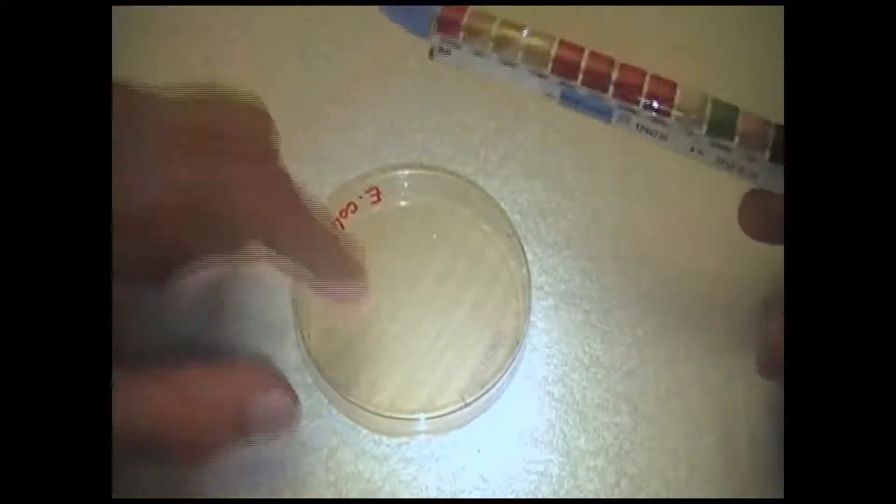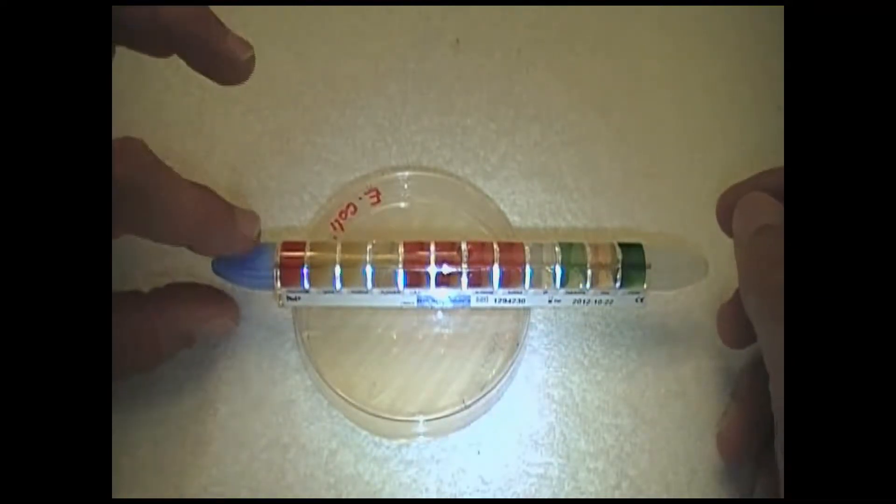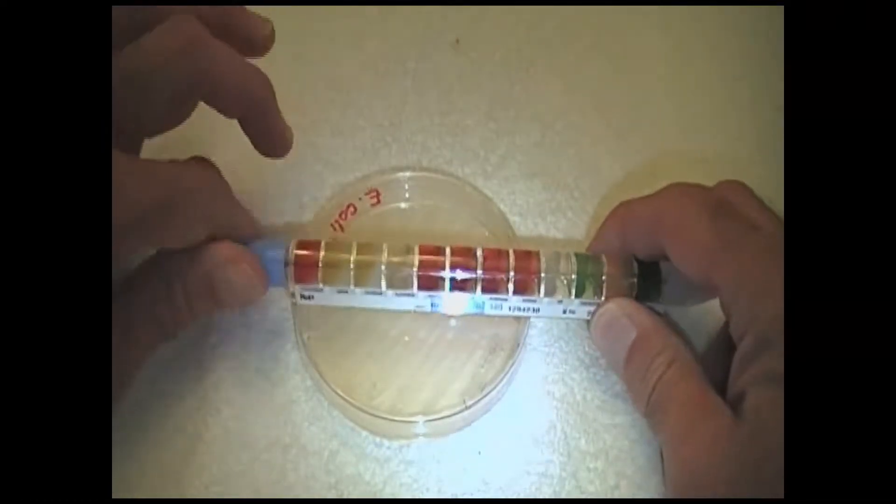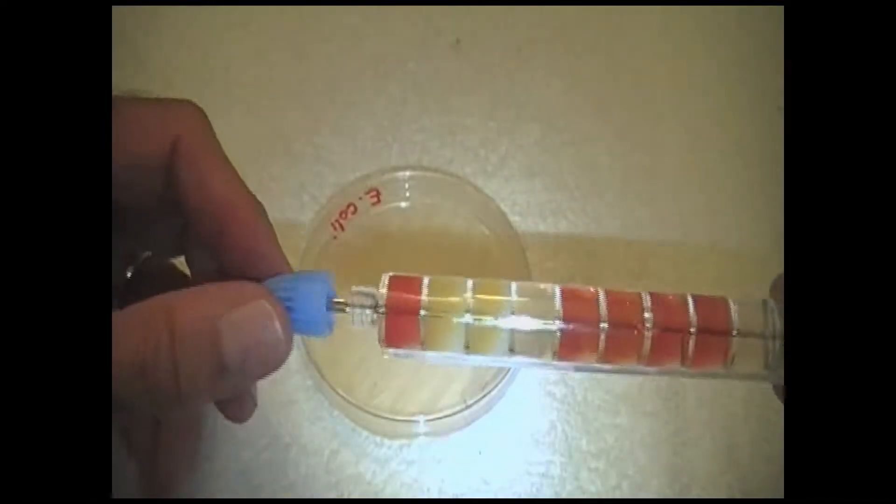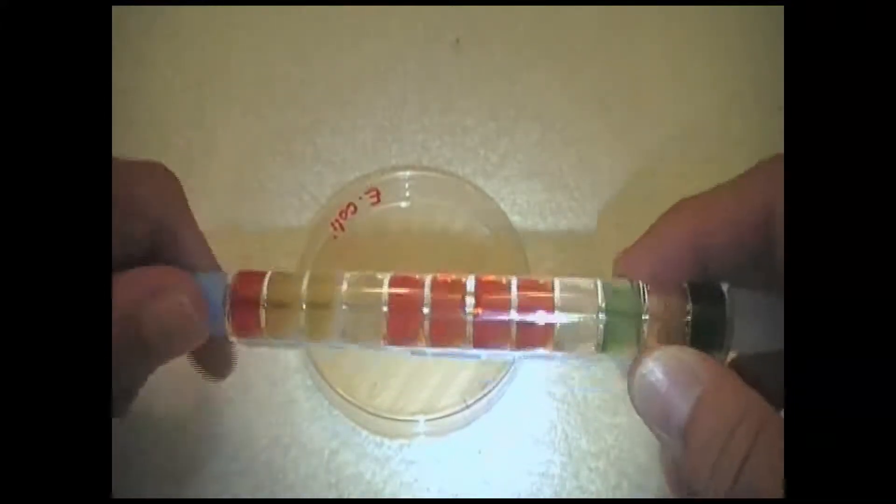We have a plate with bacteria. When you look at the entero tube, you should see two ends. This end has a blue cap, and under the blue cap is the little handle. The little handle is to pull on the wire that goes down the center of the tube.